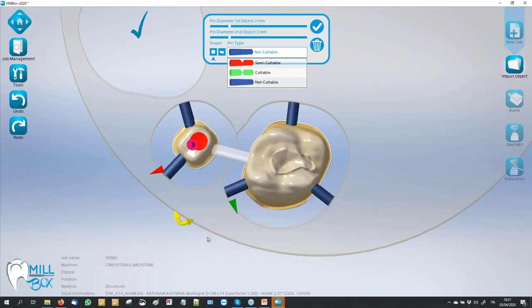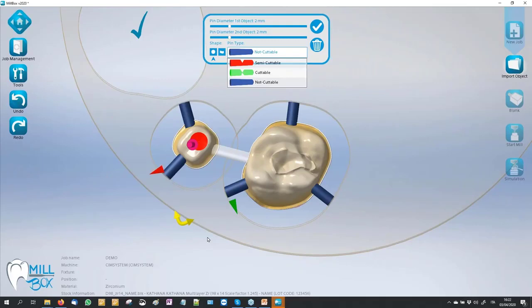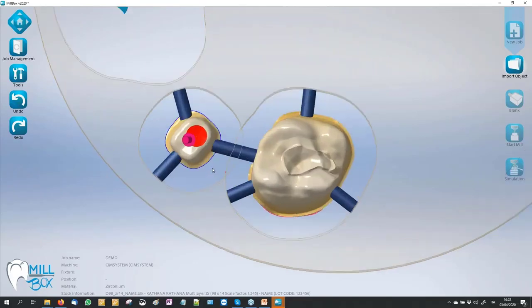Using cutable connectors is very useful to avoid discolored areas after the sintering process when the customer goes to refine the connector area — because zirconium can change and put much light to the color, and so our result when we put the ceramic can change. Using these cutable connectors we can delete this problem by having the machine refine the surface in the connector zone.